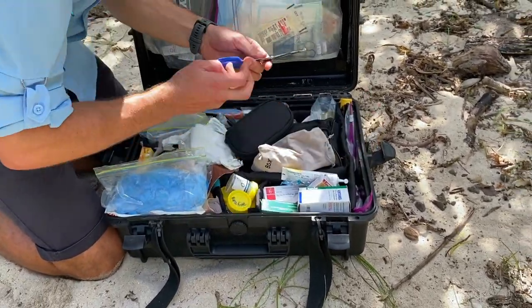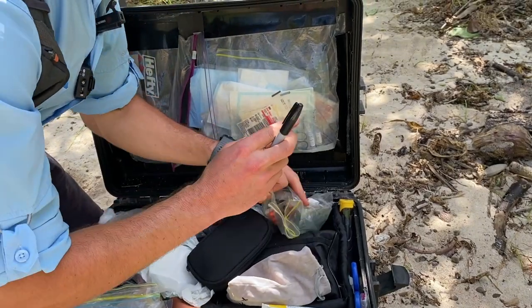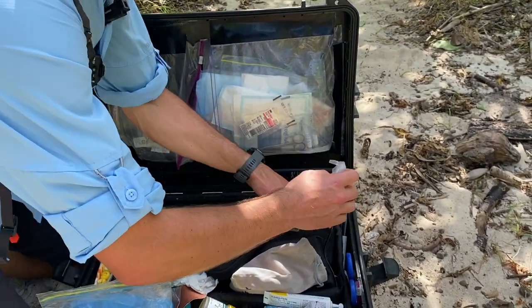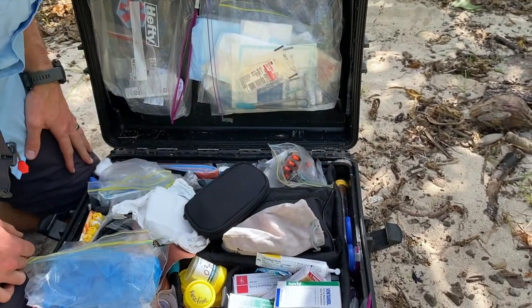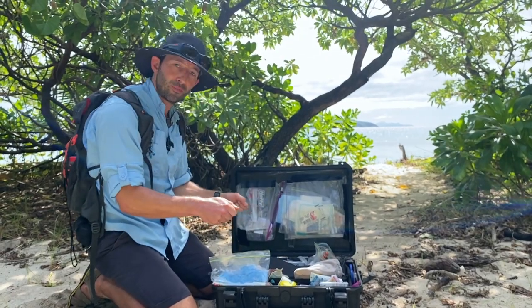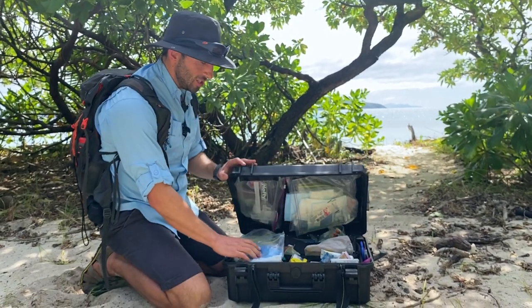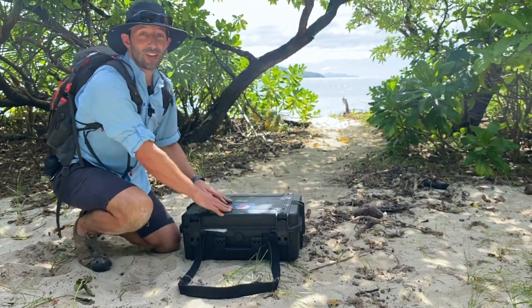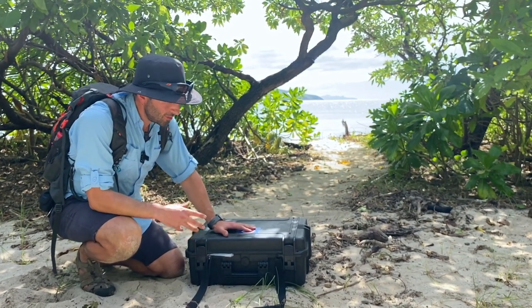At the side here I've got some scissors — always very useful — and a Sharpie, which is so helpful for drug dispensing. I've got some little bags so when I give out drugs I can write the name and dosing on them. And this is a very nifty little sharps box that lives in there. And that's it really. I mean, I wouldn't say it was perfect — I personally prefer a more modular type system with everything in separate bags that you can pull out and just get the bit you need. But in terms of space efficiency, this is a pretty good setup, and it's quite robust and portable. That is my primary care medical kit — was there anything missing, or anything in there you think shouldn't be? We'd love to hear your thoughts.